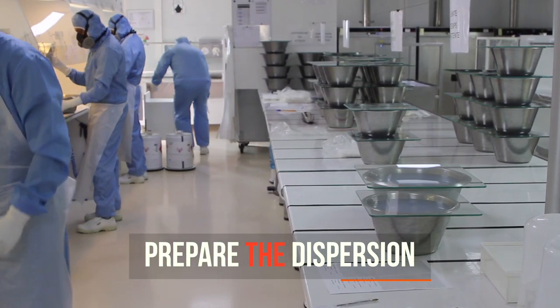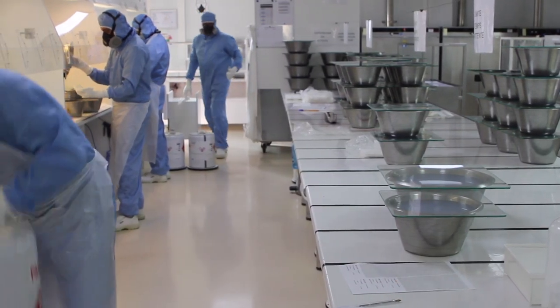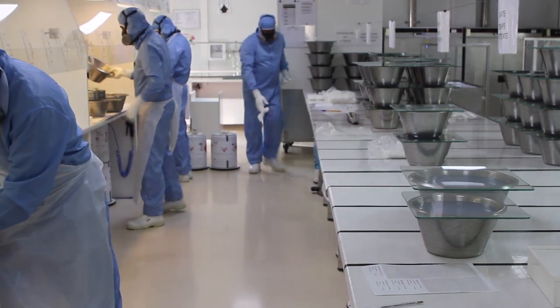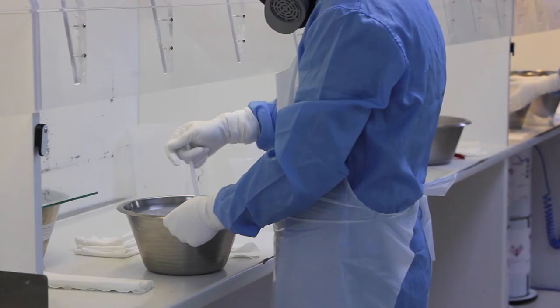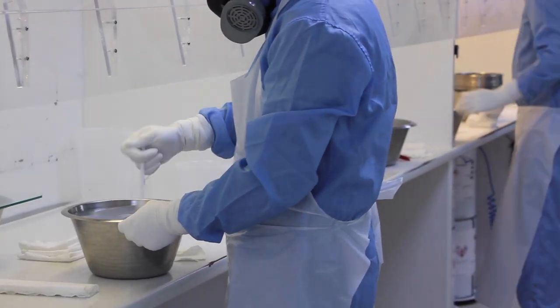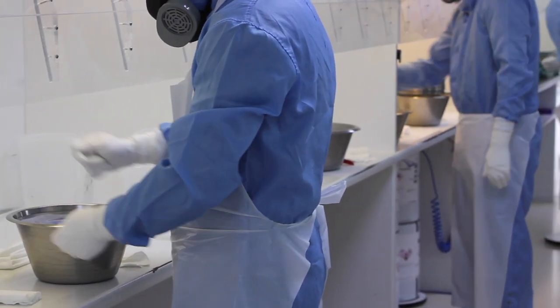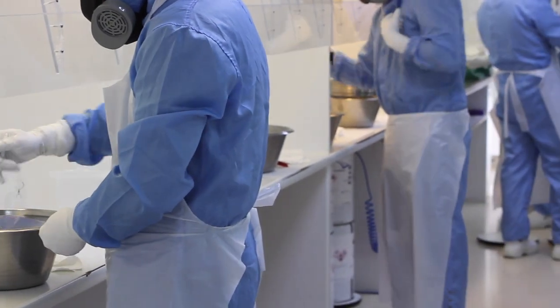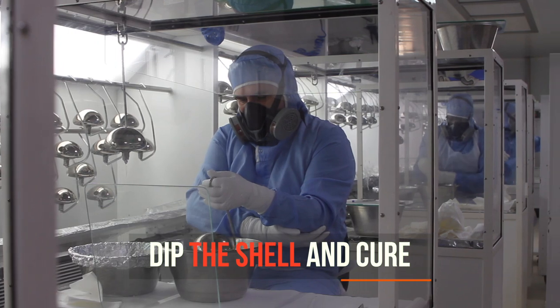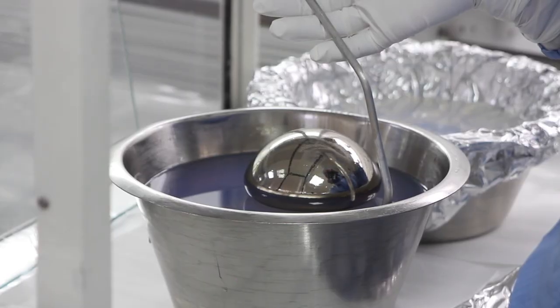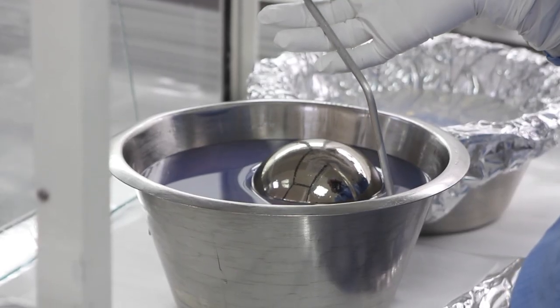From this raw material, people are preparing from dispersion different parts of silicone. We are mixing this part depending on the recipe we want to do. We are mixing the different silicone to prepare what we call the dispersion before dipping the shell. It is a very important part of the process of our product.